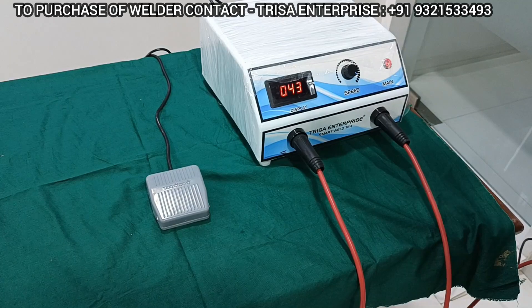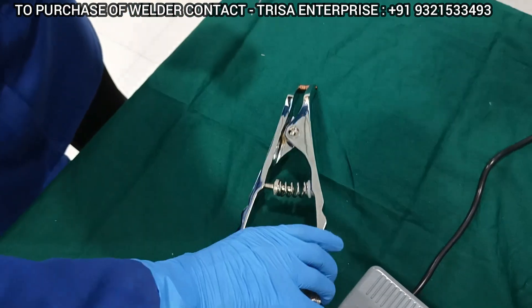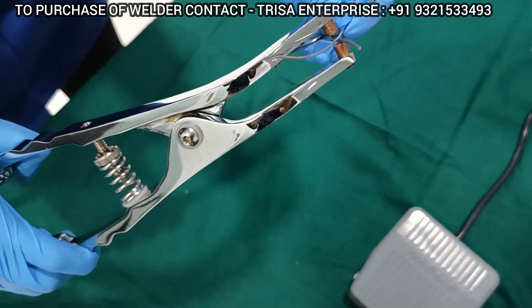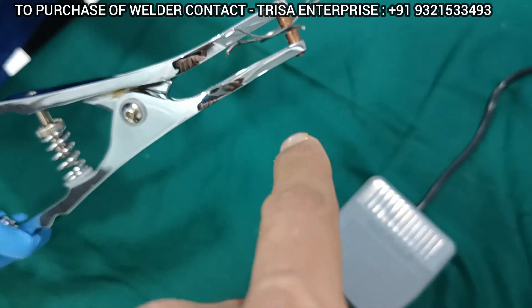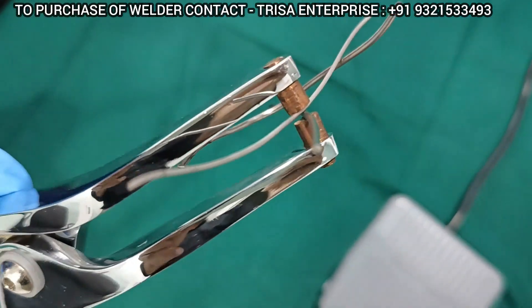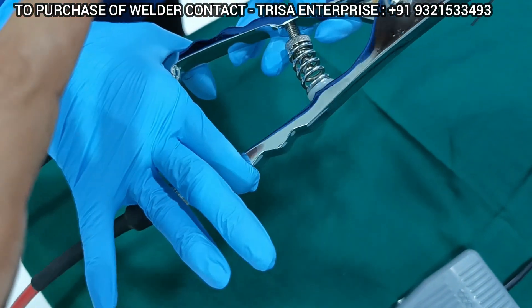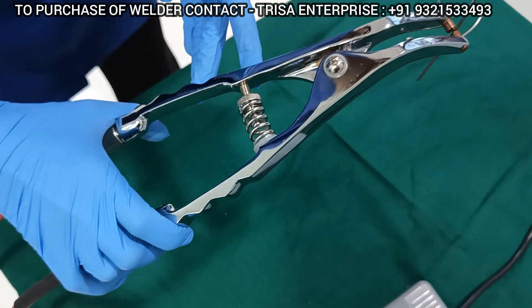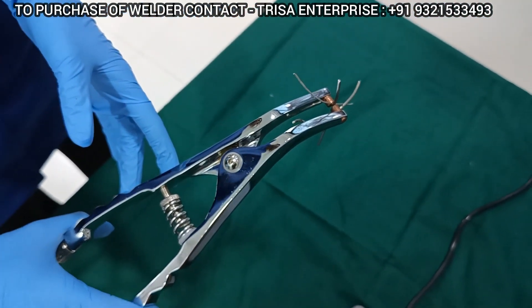Once restarted, let me show you how nicely you can weld the implant wire. Here you see Dr. Bhavna has held the titanium wires. Another beauty of the machine is the design of the clamp, which will allow you to hold the wires very nicely and securely. Make sure always that you have completely released your hand — if you keep any pressure on the hand, there is a possibility that the clamping is not complete.